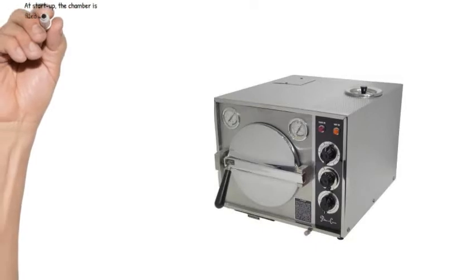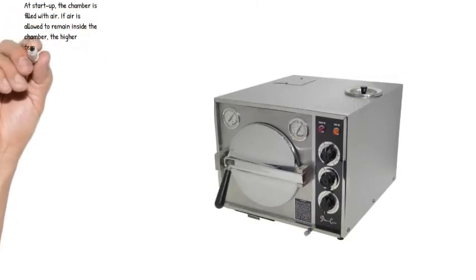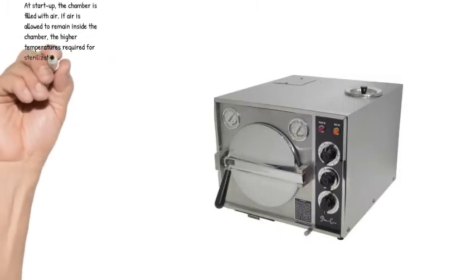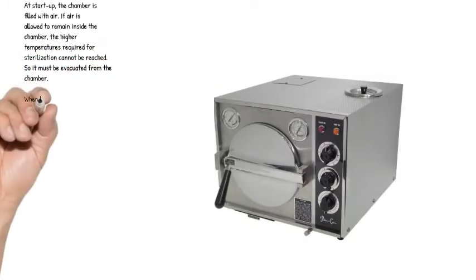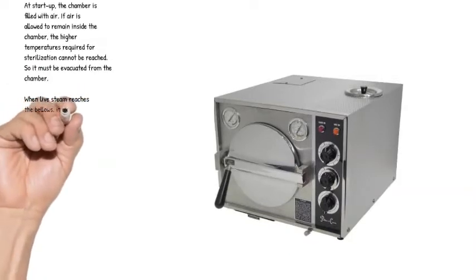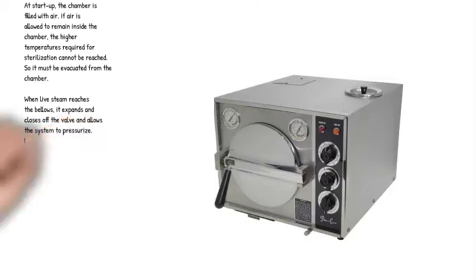Function of the Bellows. At startup, the chamber is filled with air. If air is allowed to remain inside the chamber, the higher temperatures required for sterilization cannot be reached, so it must be evacuated. When live steam reaches the bellows, it expands and closes off the valve and allows the system to pressurize.